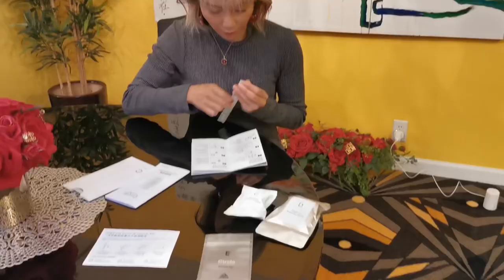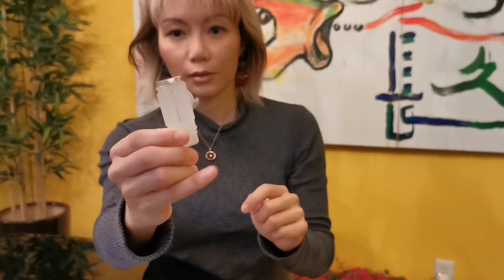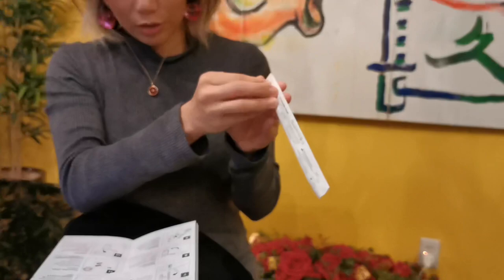So now it's getting ready. First, open the sleeve package. There's some liquid inside. Now, remove this package.